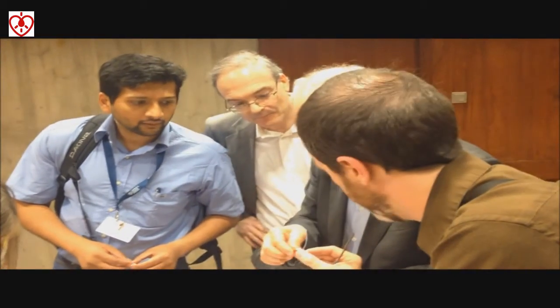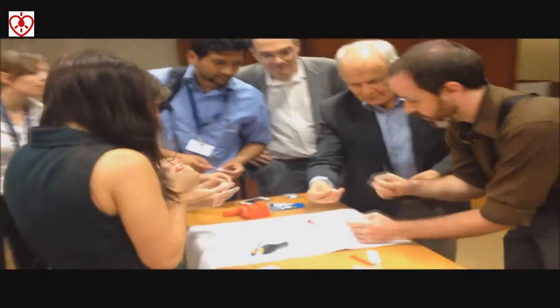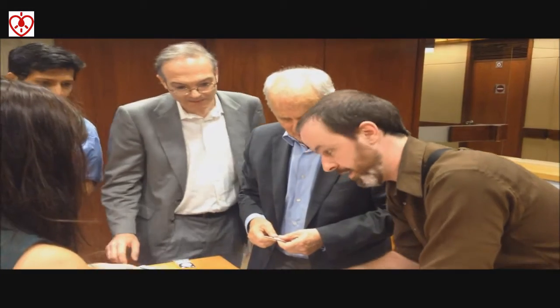Those snap-together linkages are also printable — that pin that holds it together is printable. You used to have two fingers on the side. It's missing here; you have a separate pin. These will be held together by the knuckles. It's specifically designed to print through two fingers.